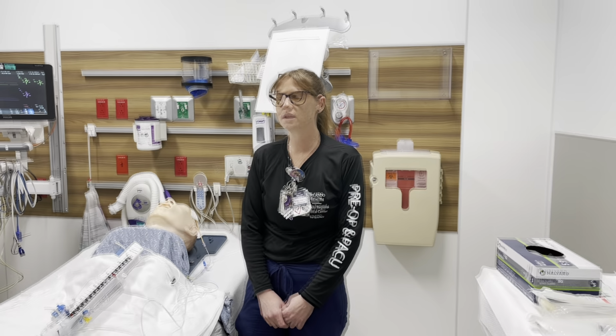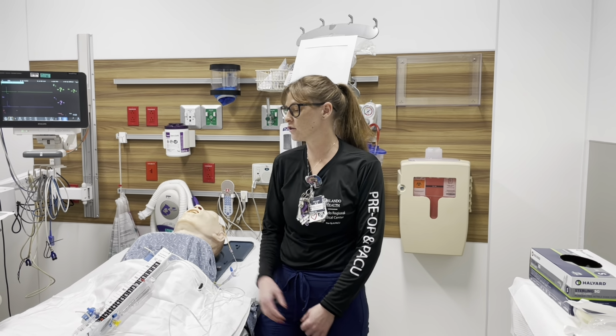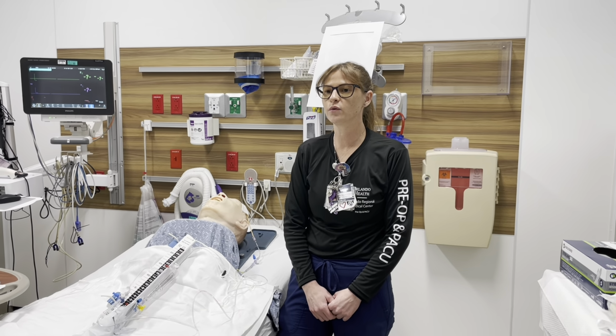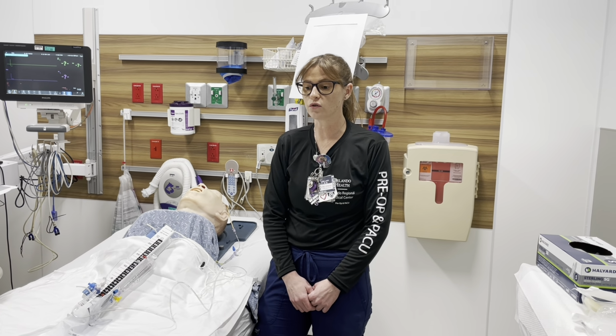So EVD training is because we frequently get patients that have head trauma and are requiring some external ventricular drains. And so it is important to know how to set up these drains and what to watch for with these drains.